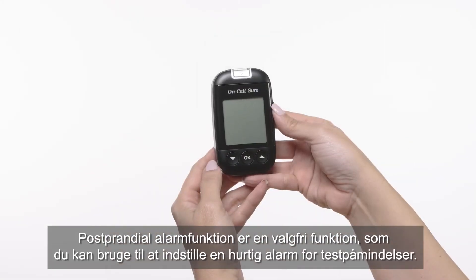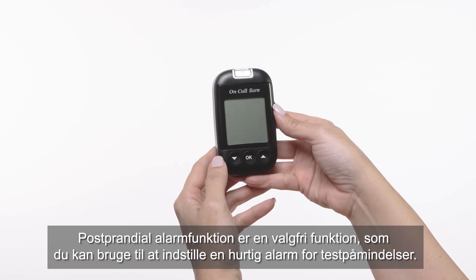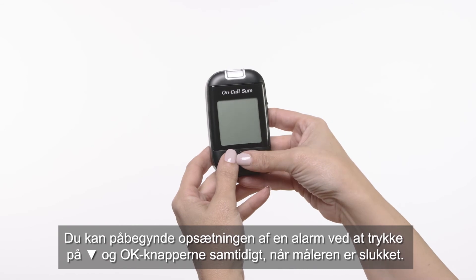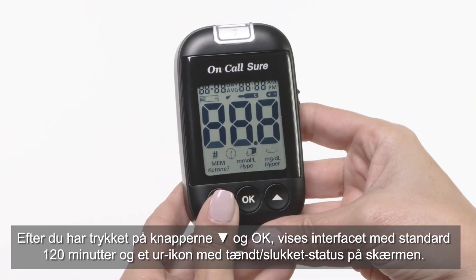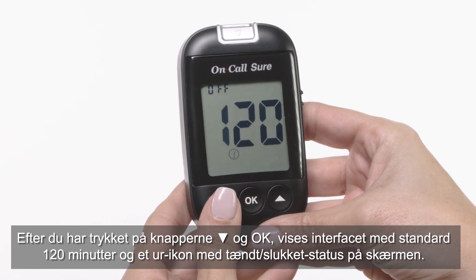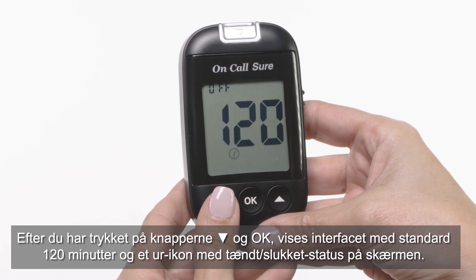The post-prandial alarm function is an optional function that you can use to set up a quick test reminder alarm. You can start setting up an alarm by pressing the down and OK buttons together when the meter is off. After pressing down and OK buttons, the interface will default to 120 minutes and a clock icon with on/off status will appear on the screen.